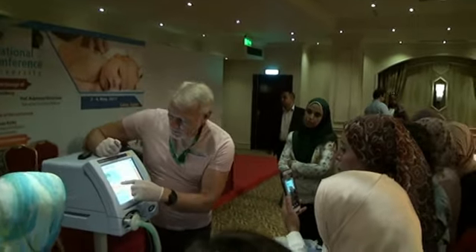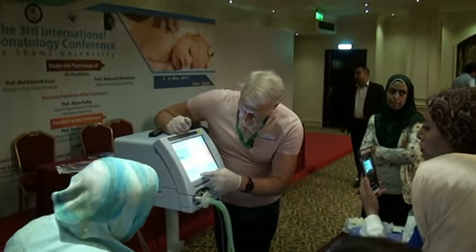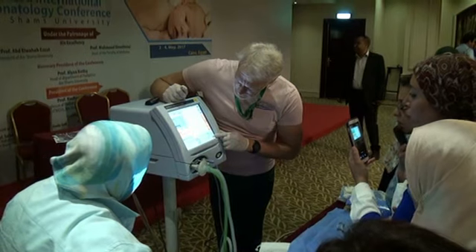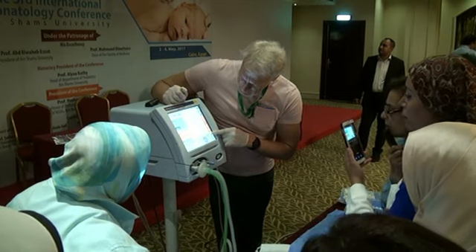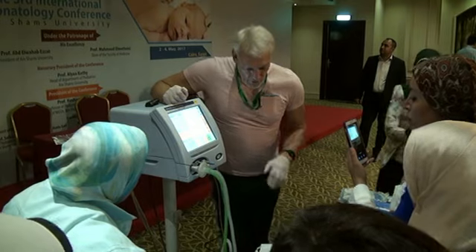So if I were to change my mode and I were to change to high frequency, and I've got a 10 there, I've got a mean that I need to put up, what did I say it was? 14, there we go. And I've got a delta P that I need to put up, we'll try 30. Won't go more than 30 at the moment. And confirm that, now watch.